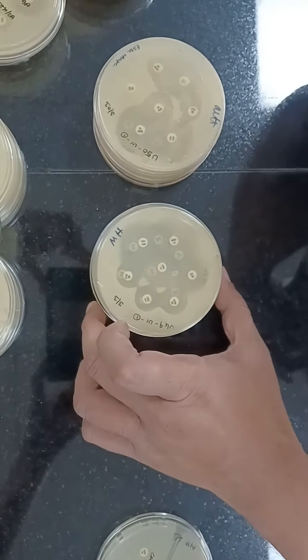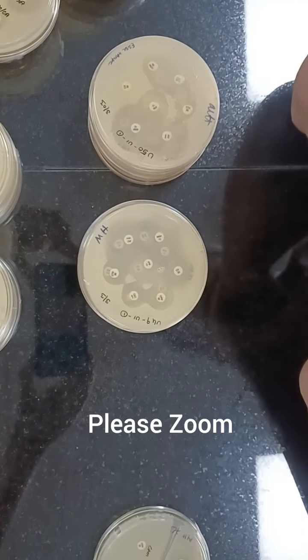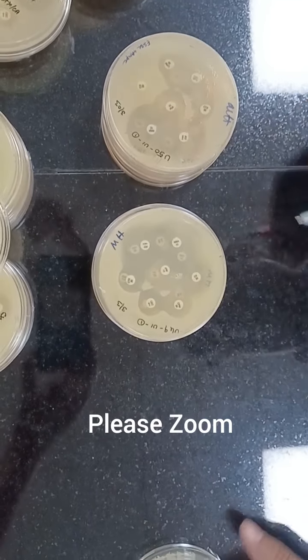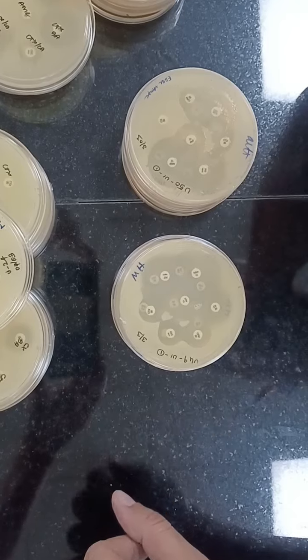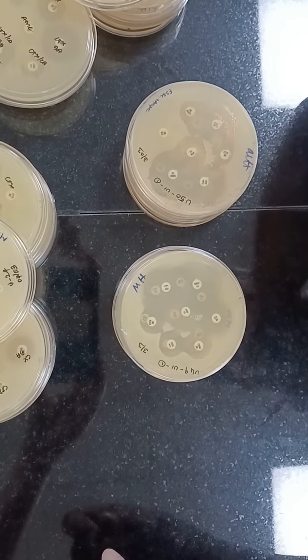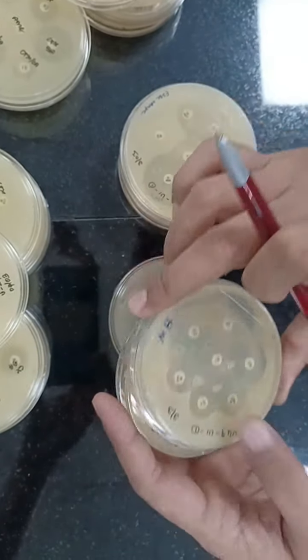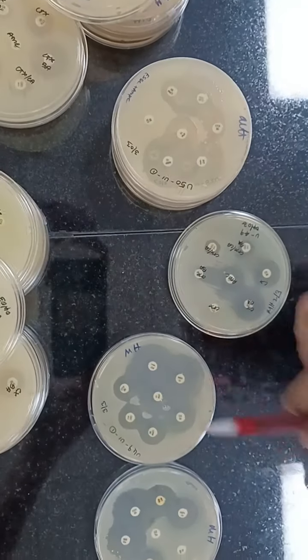Good evening to all of you. This workshop just got over and we got certain feedback and comments saying that we need to make a few videos about the daily AST plates. So I am here in the lab, assisted by my PG student Dr. Priyadarshini who is holding the camera right now. We'll just review these plates — these are the daily AST plates that we had shown you.